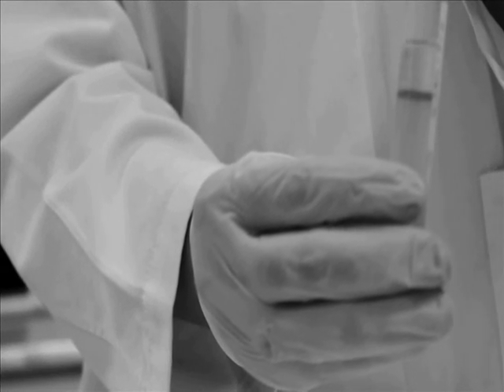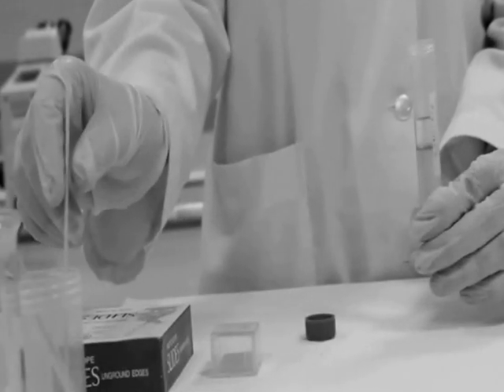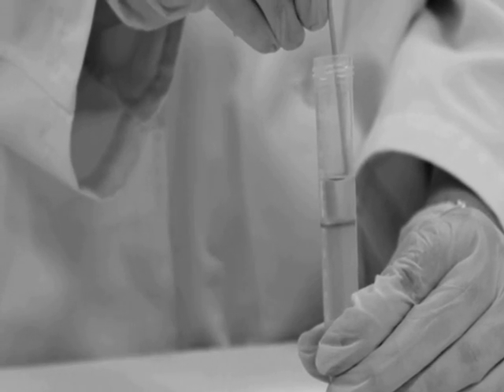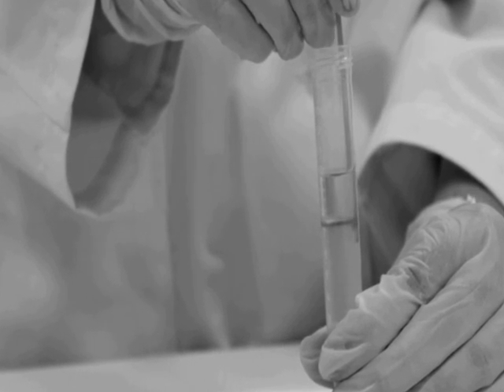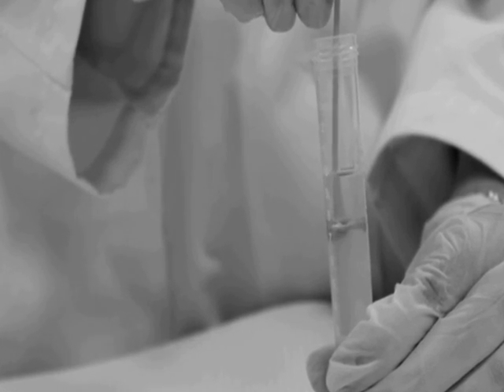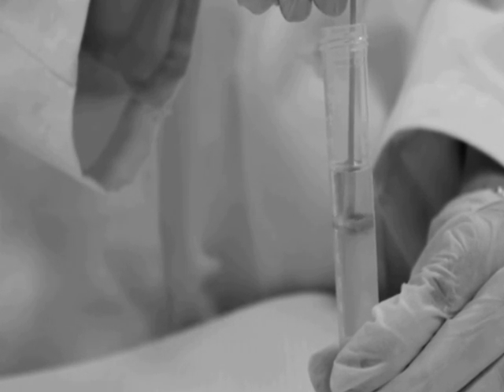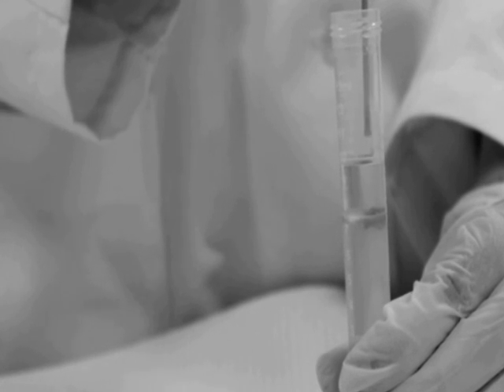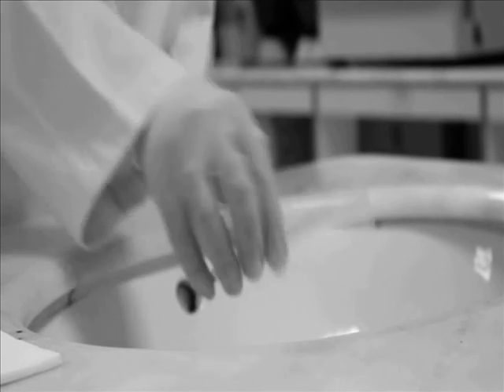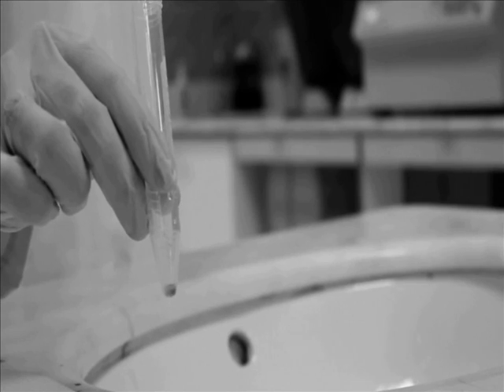After centrifugation, you can see a block of fatty debris on the top of the tube. Loosen the block with a wooden stick. Then invert the tube quickly to discard the supernatant. A few drops should be kept with the sediment.